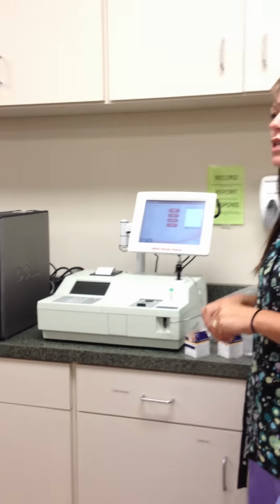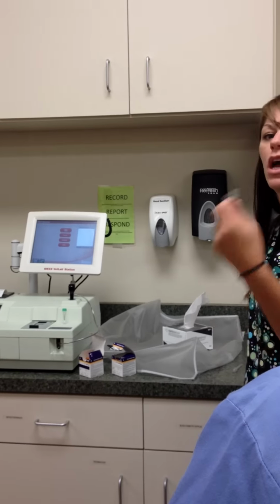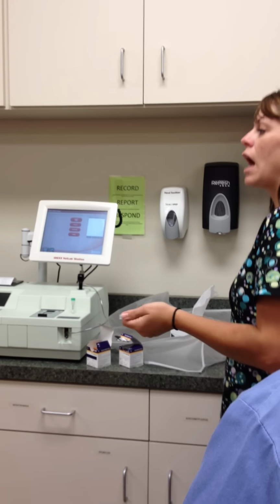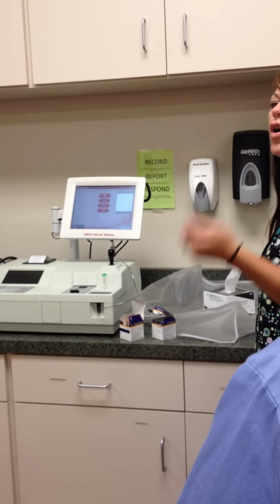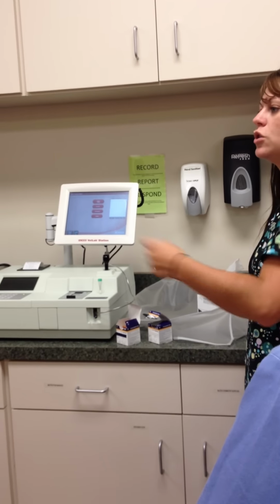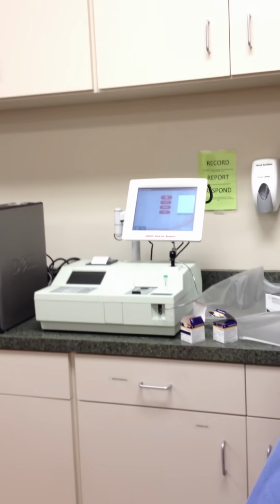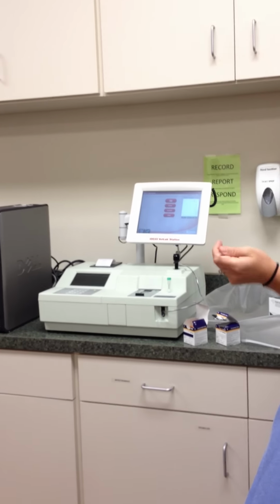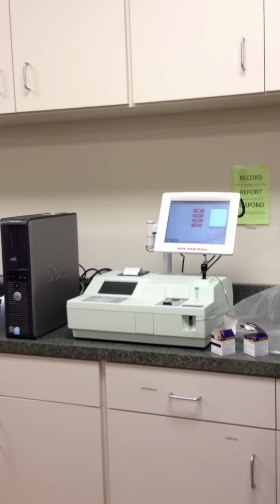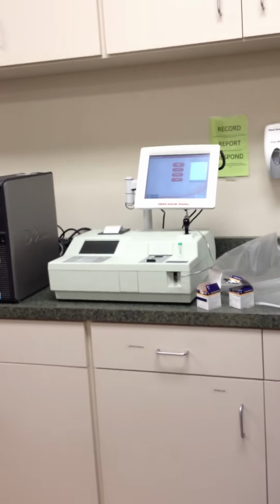Once your paper is printed, you will have also ran your microhematocrit tube, spun that down, got your PCV, gotten your total solids, write those results on there, and you will also ran your heartworm test, write those results on there as well. Bring it to myself, Megan, or Dr. Katie. We will okay the patient for surgery. If something is funky, and we want to consult Dr. Katie about it, we will, and we will go from there to figure out what the next step is.